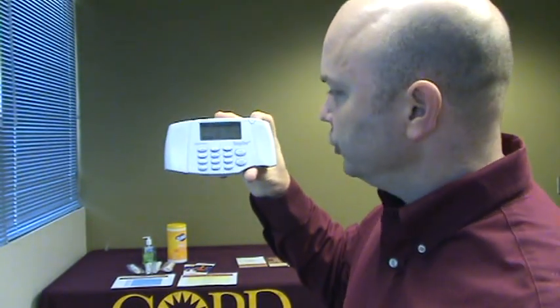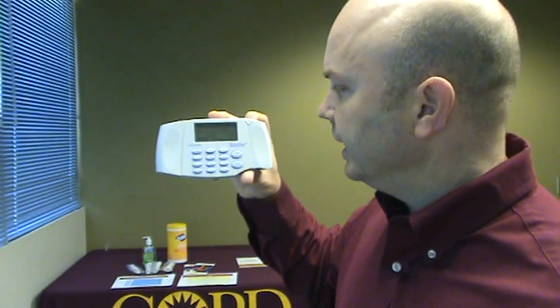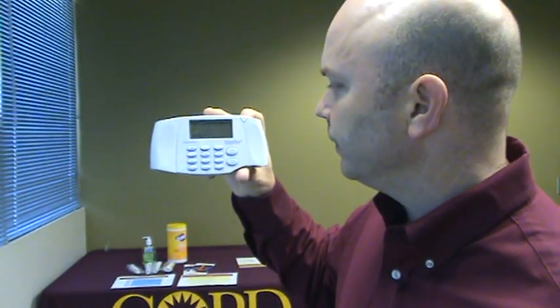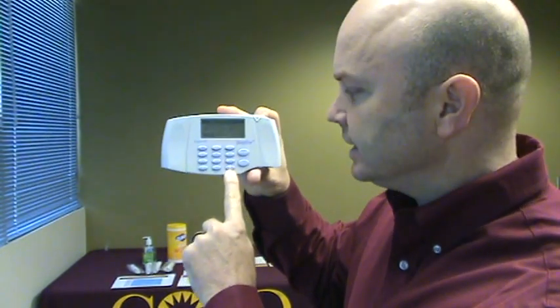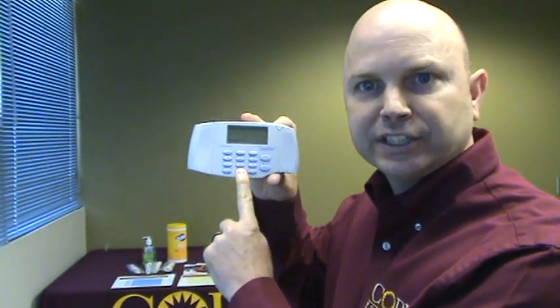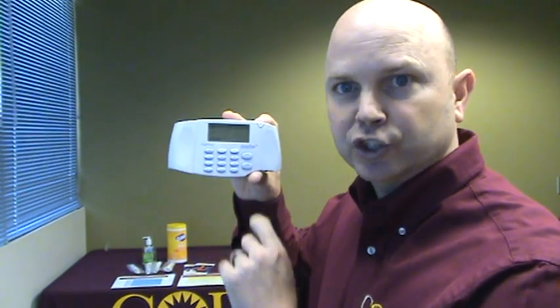When you navigate through the menu screen, you're going to notice the numbered buttons and the letters. This operates just like a cell phone — it's alphanumeric. If you want the letter C, you're going to press the number 2 button three times, just like on a cell phone. You'll also notice the left arrow, right arrow keypads, and escape. If you're in a menu option and you want to get out, you press and hold the escape button for three seconds, and that jumps you out to the main screen.